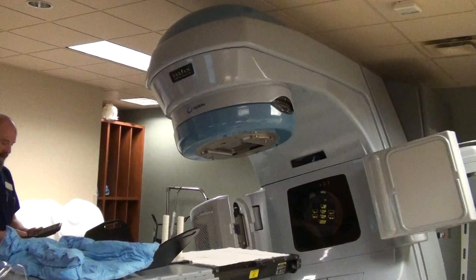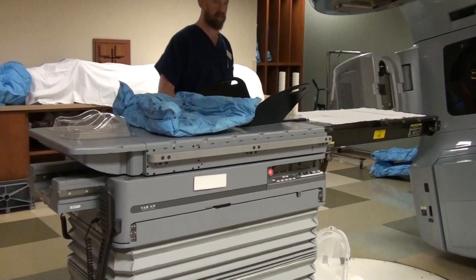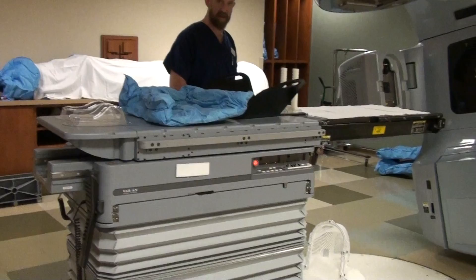We have the table. It goes up, down, in, out, left, right, and it also rotates in this fashion.